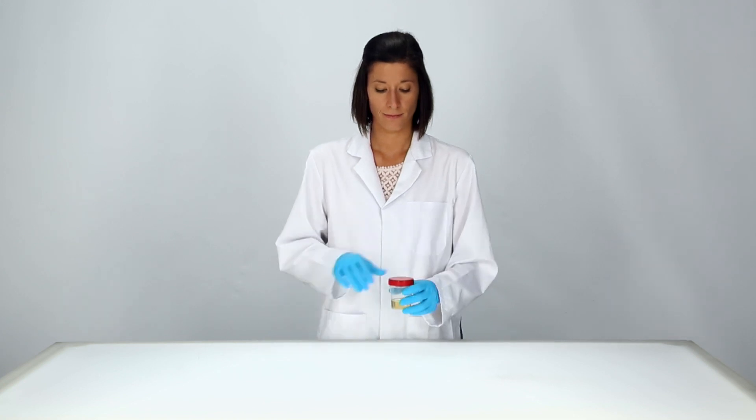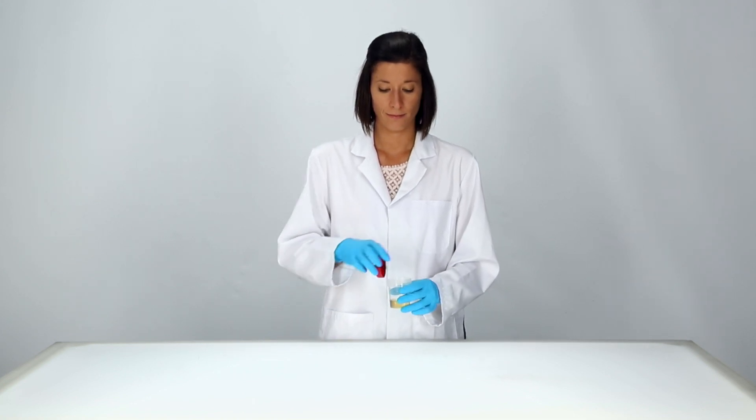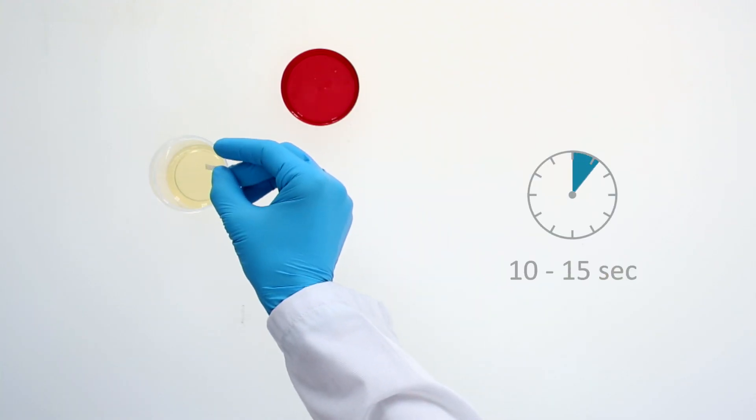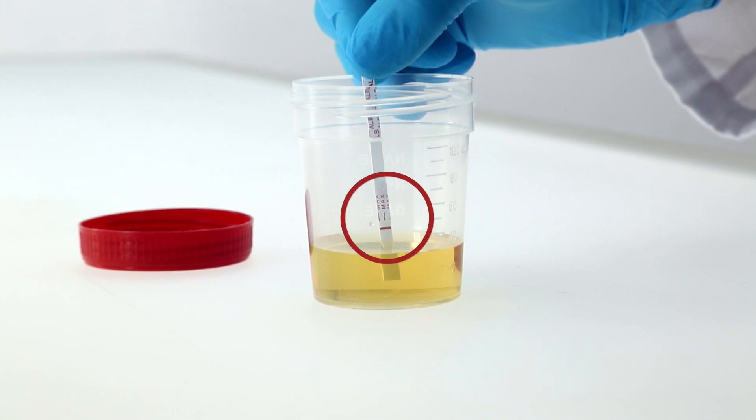The urine specimen must be collected in a clean and dry sample container. Immerse the test strip in the urine for 10 to 15 seconds. The liquid must not exceed the max mark.